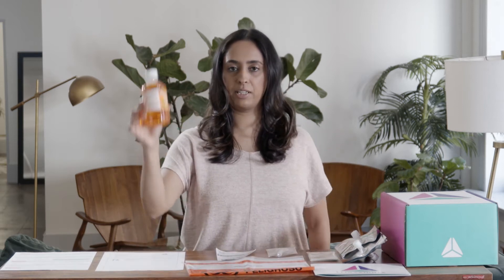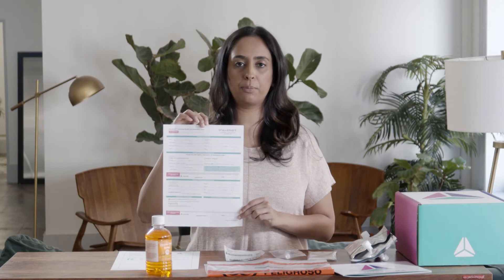Your kit may also include a glucose drink or a prescription for lactulose that you need to fill at your pharmacy before moving forward. In some cases, your doctor might have called the prescription in directly with your pharmacy. Lastly, one doctor-signed requisition form.